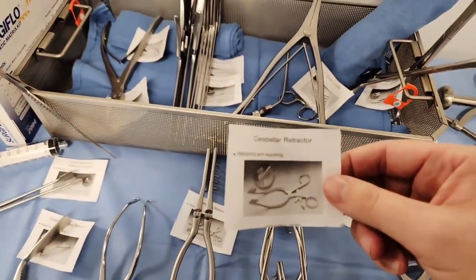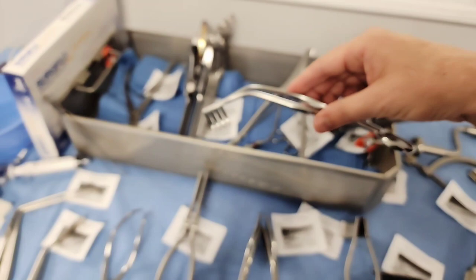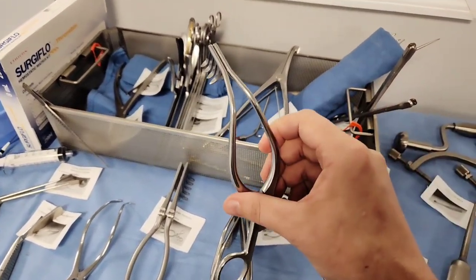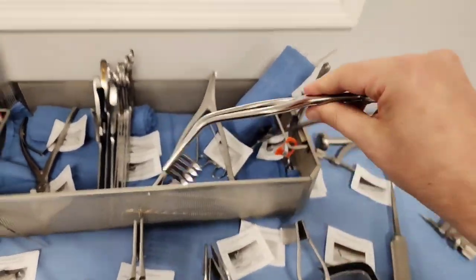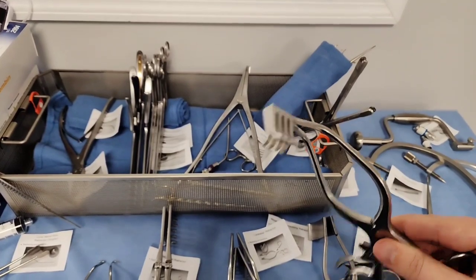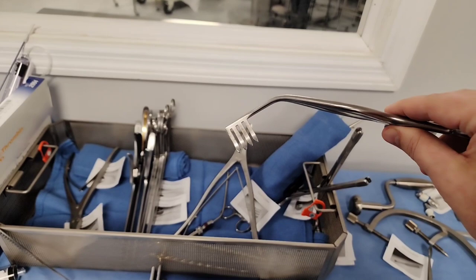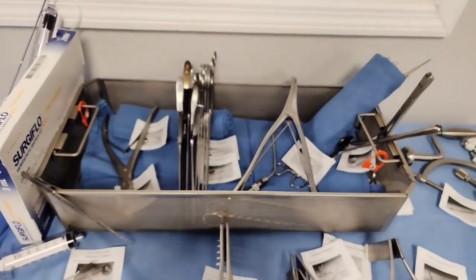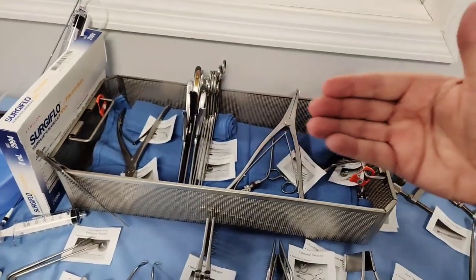Next is the cerebellar retractor — a self-retaining retractor. It's commonly confused with the Weitlaner, but notice it has a curved edge to it, as opposed to the Weitlaner which is more straight. They do come dull or sharp, just like the Weitlaner. Why do we have that curvedness on a lot of these retraction devices? As you make an incision in the back and progressively go deeper, that curve helps.